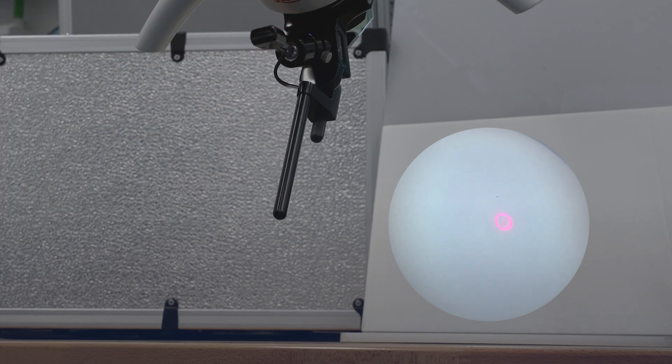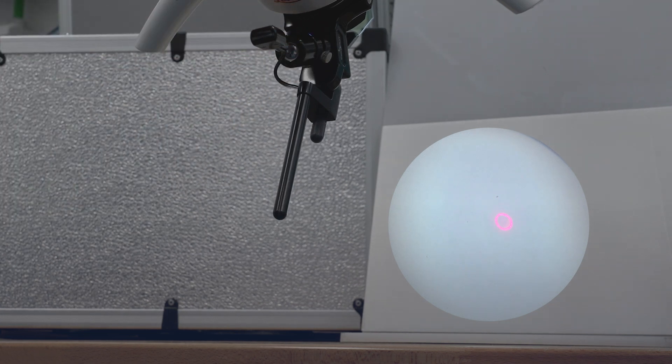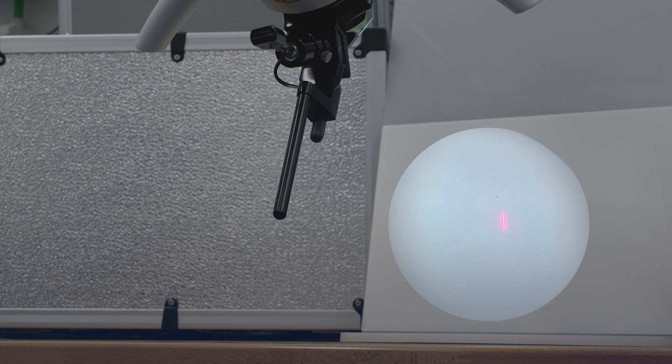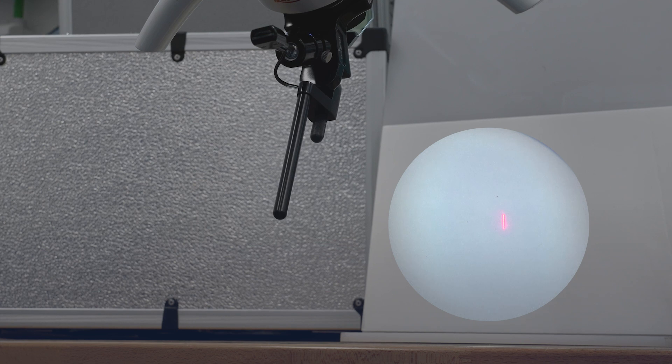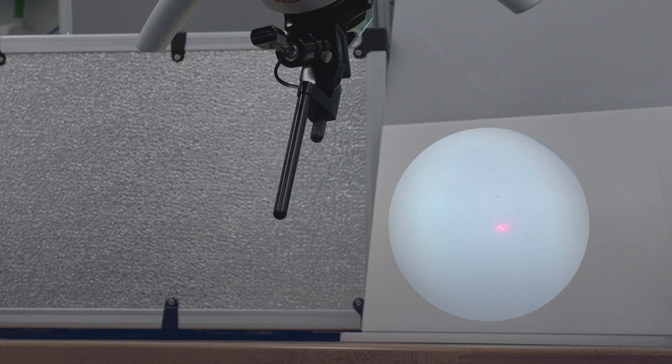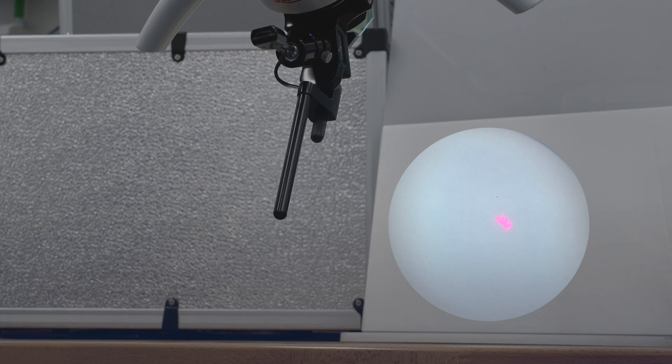I would like to remind you that in addition to controlling the line, the joystick is capable of managing many other shapes, as shown in the video.